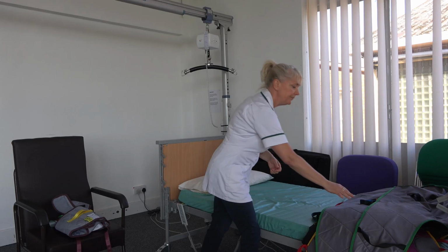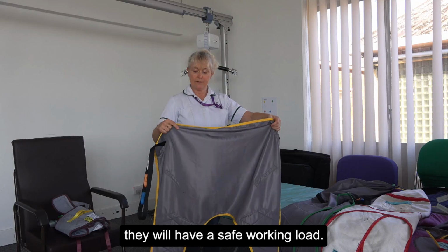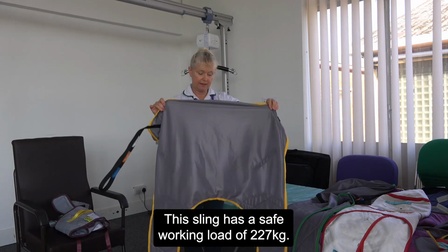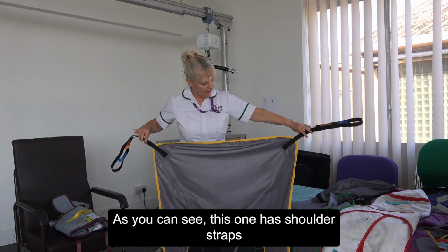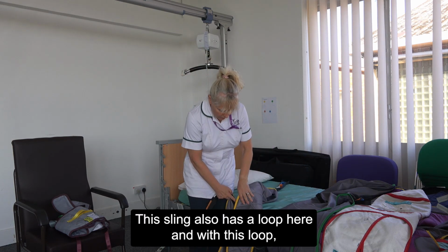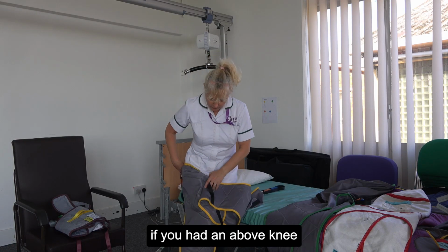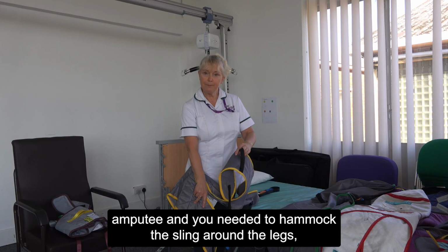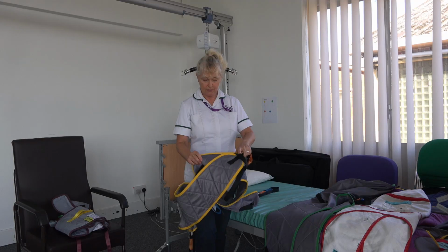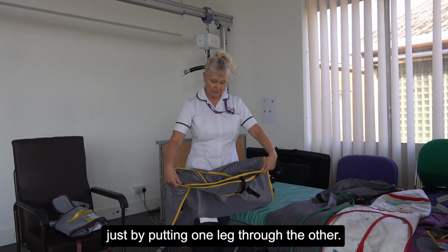Moving on to the next sling, we have here the quick fit sling. With all slings, they all have a safe working load, and this sling has a safe working load of 227 kilograms. As you can see, this one has shoulder straps and leg straps. This sling also has a loop here, and with this loop, if you had an above knee amputee and you needed to hammock the sling around the legs, you could do that just by putting one leg through the other.